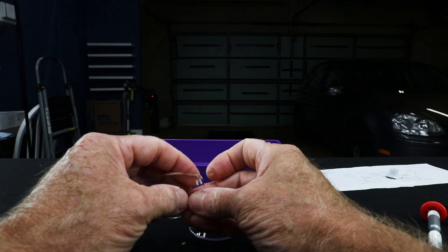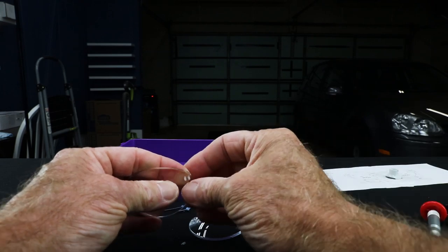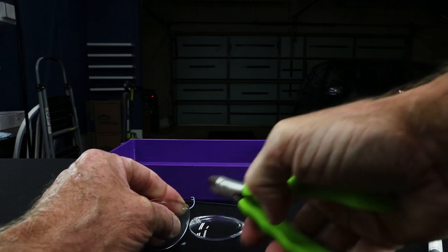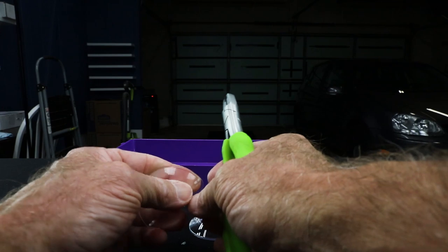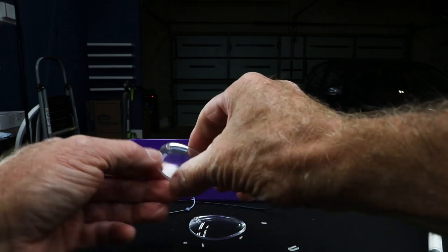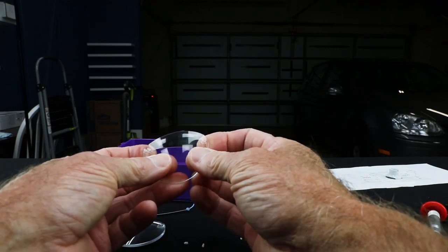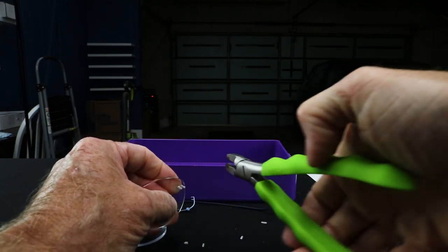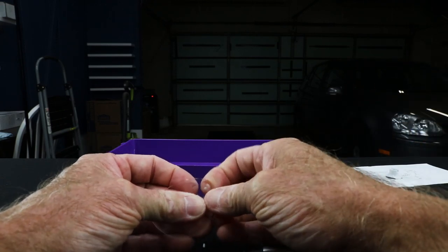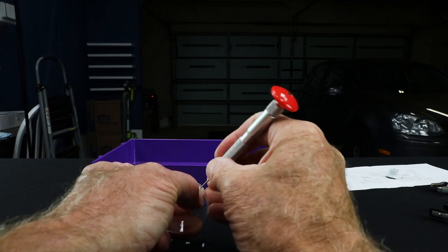There are my bushings in place. As I mentioned before, I'm going to be pushing back from the backside, getting those bushings pushed as far forward as possible, then clip nice and clean, snug right up against the lens. Pushing from behind — snip, snip. There's my right done. Let's go ahead and do my left. I did not have a set of lenses with AR coating — I just didn't have any in my drawers, so these aren't going to be quite as beautiful as they should be. Let's go ahead and open those holes up.